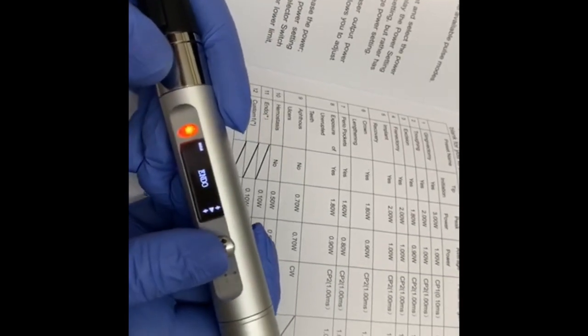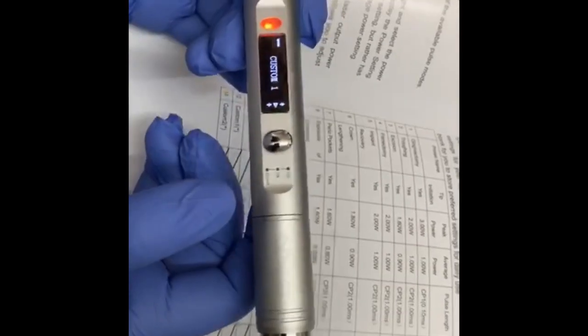Endo, then you can customize this in customized one and two. It's all preset.